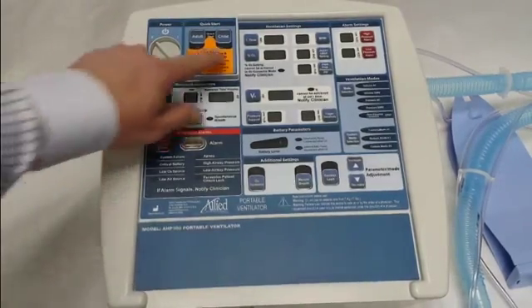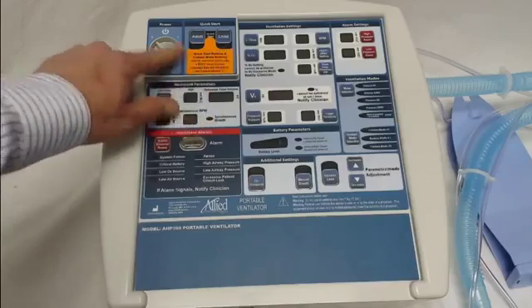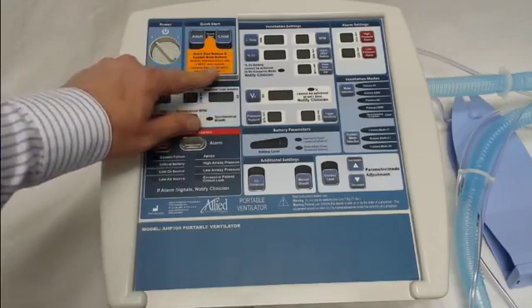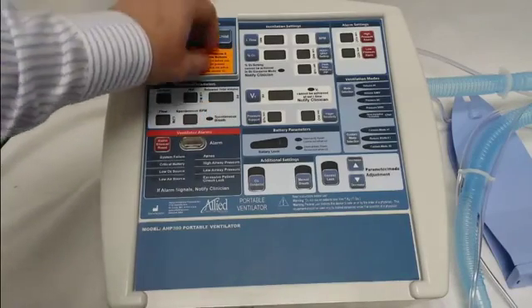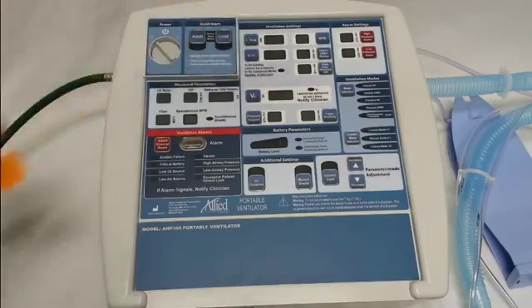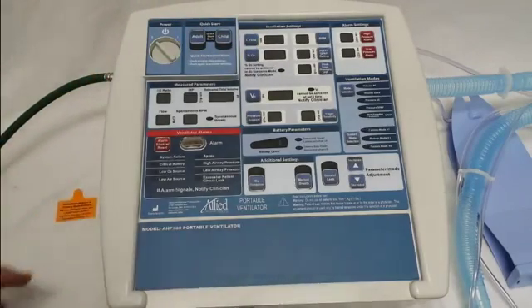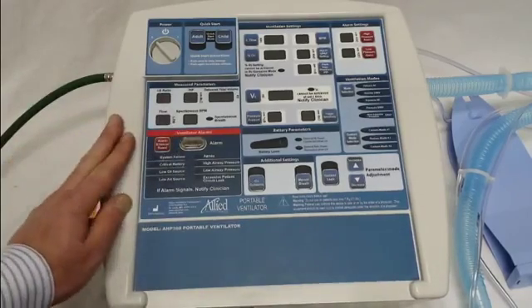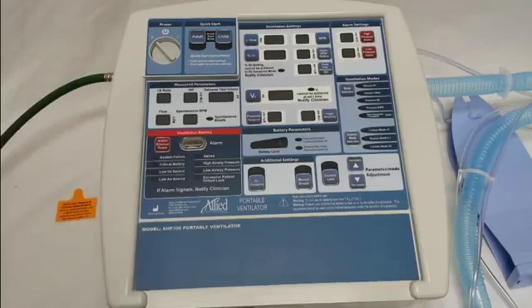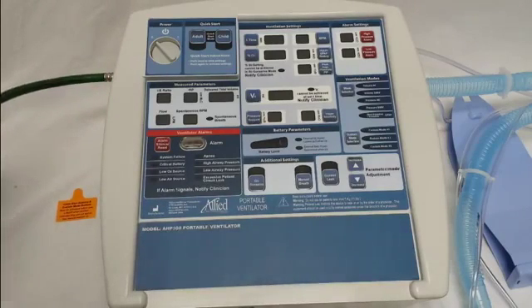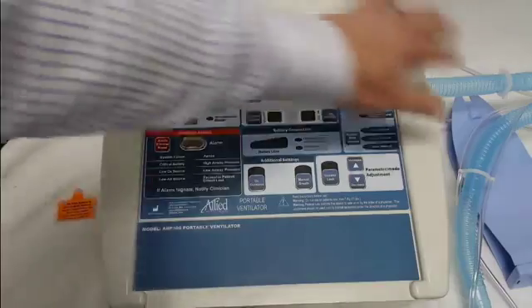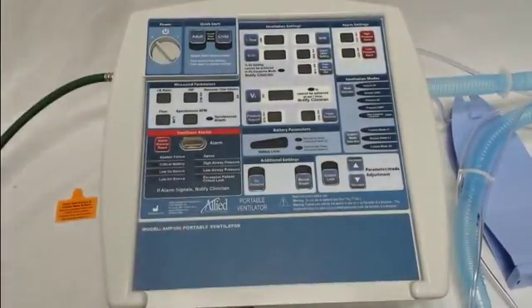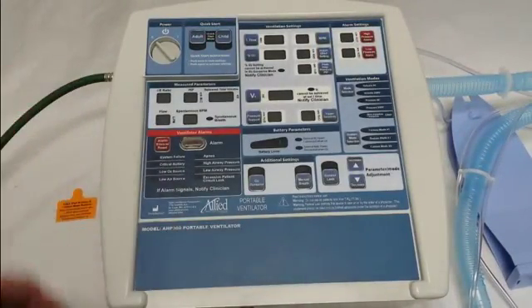The first thing you'll notice when you open up the box and pull the ventilator out is there's an orange sticker here. That simply says that these modes are not able to be used until they're either confirmed or programmed. I would recommend that if possible, have an oxygen hose available and have your circuit and a test lung available — that will just prevent any alarms and make the programming easier.